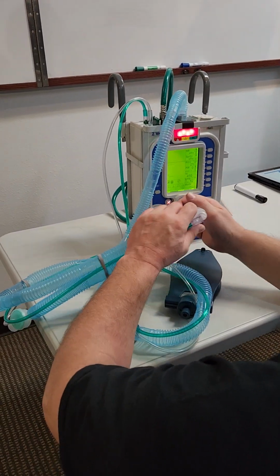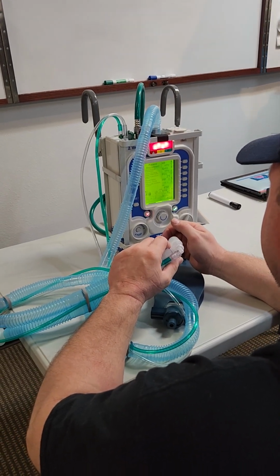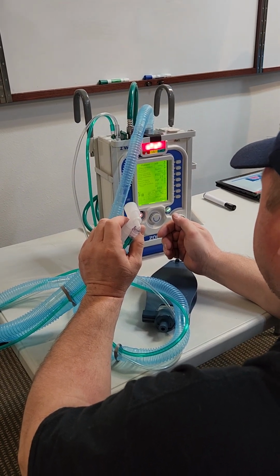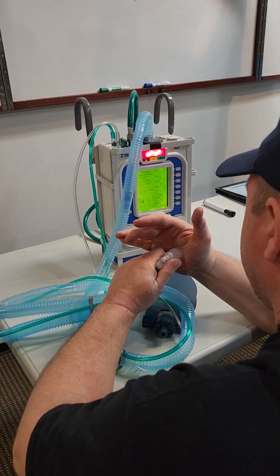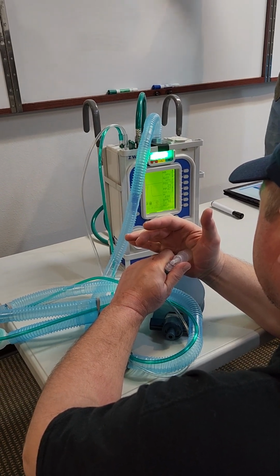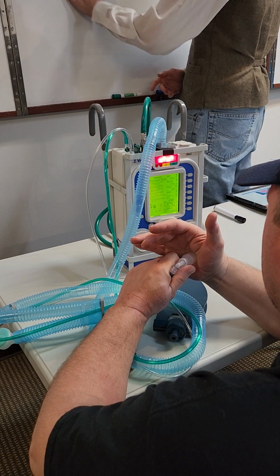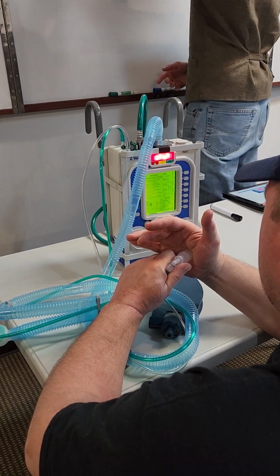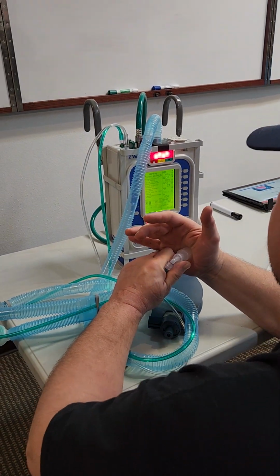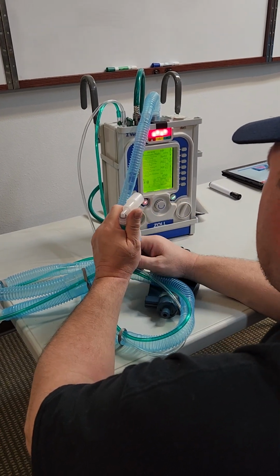Oh, that's right. Okay. Now, does it give you patient disconnect alarm? Patient disconnect, yeah. Okay, so you know now that if there's nothing attached to it, it's going to say there's no patient. Okay, so now you put your gloved hand over the entrance, and you're going to wait for it to give you 3 high airway pressure alarms. That ensures you that the... Okay, airway pressure high. Yep. Okay, still high. And still high. Okay, so it's just gonna chirp at me 3 times like that. Yep. That's it. That's all you gotta do. That's how you know your circuit. And now the circuit's good.